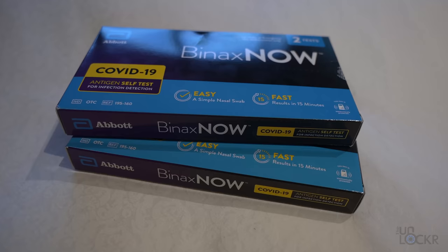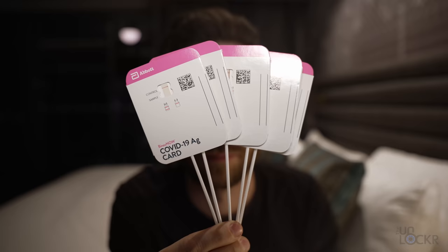Okay, at the Abbott booth at the Las Vegas Convention Center here at CES. And it's been a weird one thanks to the Omicron variant of COVID-19 hitting here in the US. But I've actually been using the Abbott Binax Now at-home tests every morning since I've been here. And so far, five days, five negative tests. Which brings us back to the original question of this video: how do these tests even work?